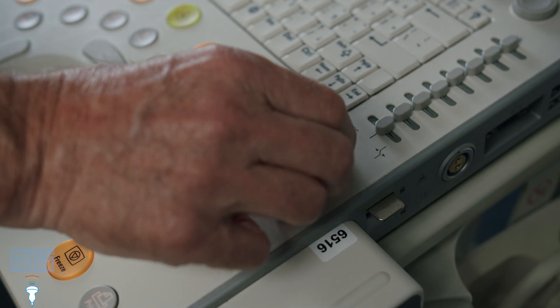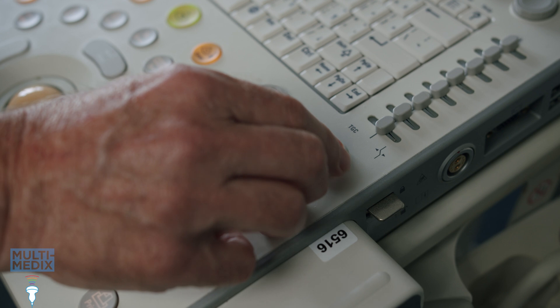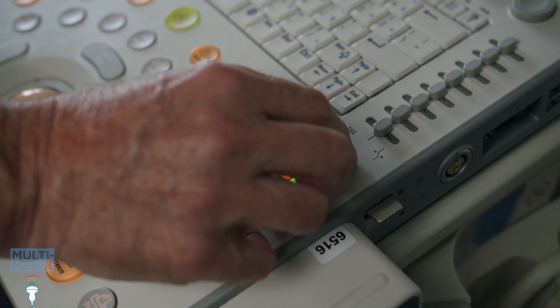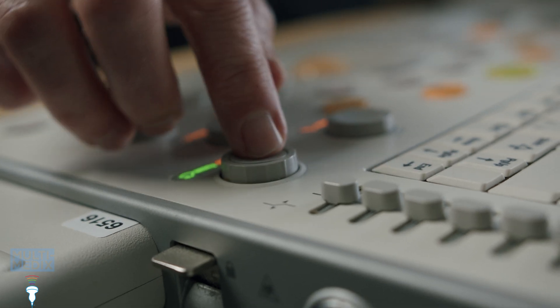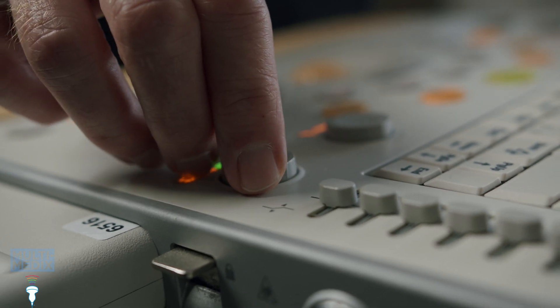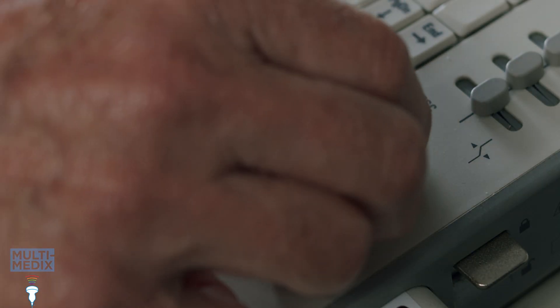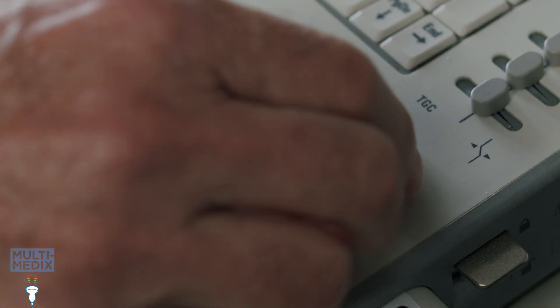I'm interested in the depth of in-air reverberation, so I'm adjusting scale to magnify this area to 20 to 50% of the display, without losing the ends of the probe. For phased arrays the starting point should be a scale of at least 10 centimetres to make sure that all the elements are active.